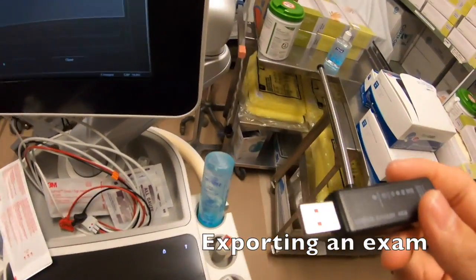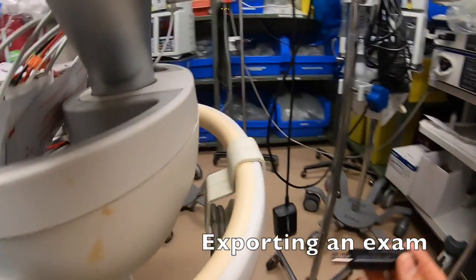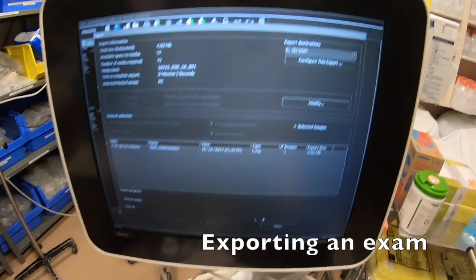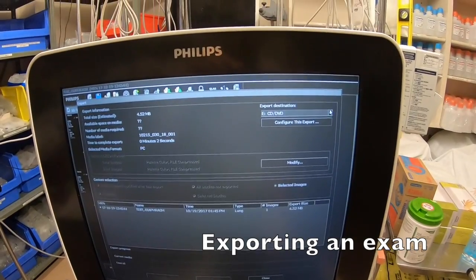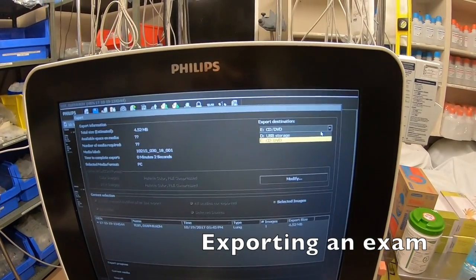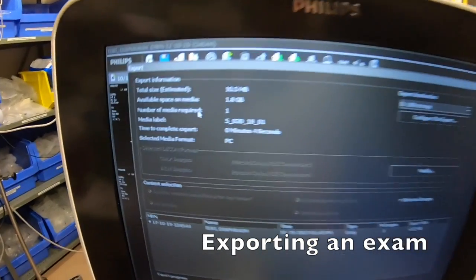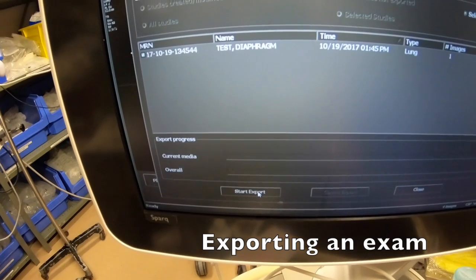Plug your USB stick into the back. Once you've plugged your USB flash drive in, select it from the options for Export Destination. Select USB, verify that you're in PC mode, and then simply press Start Export.